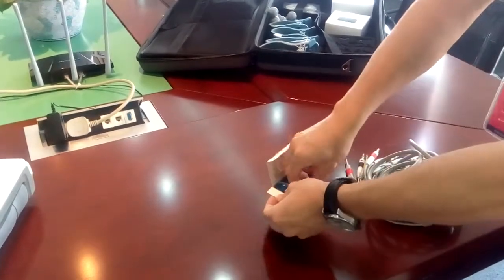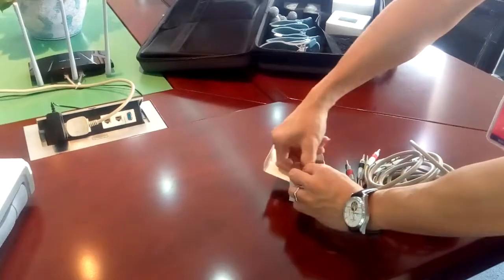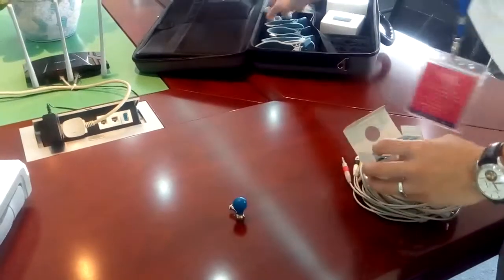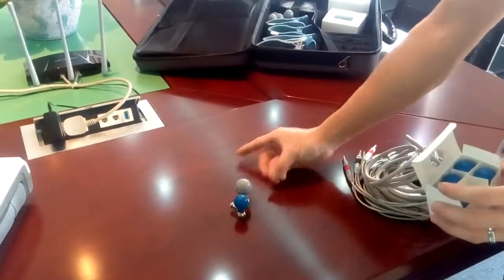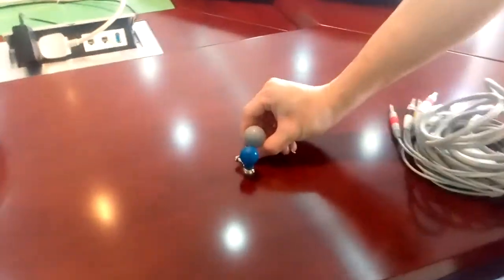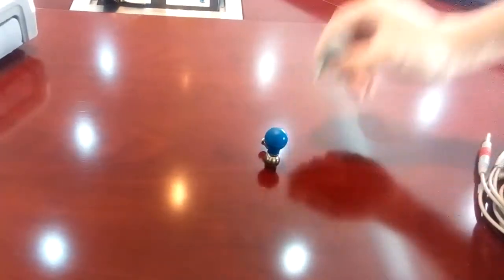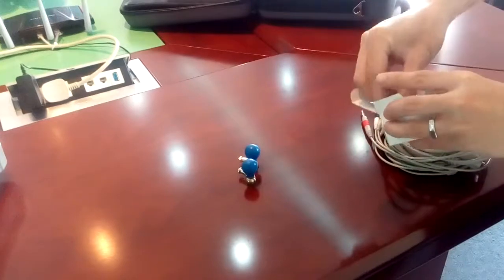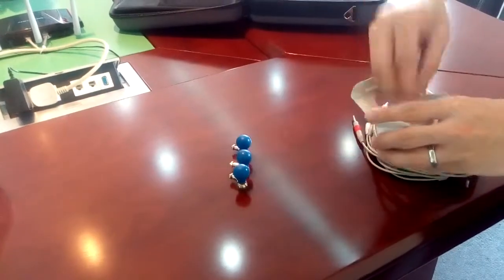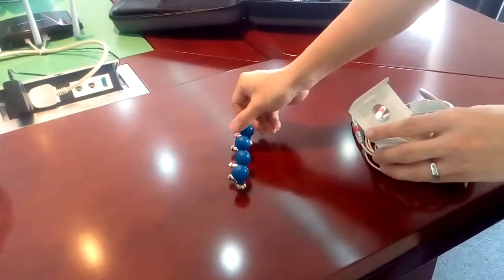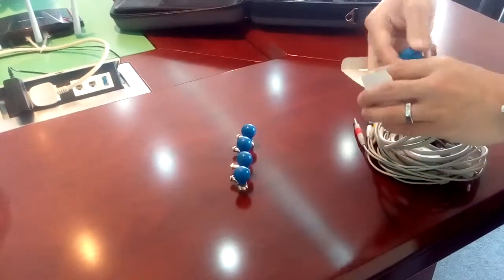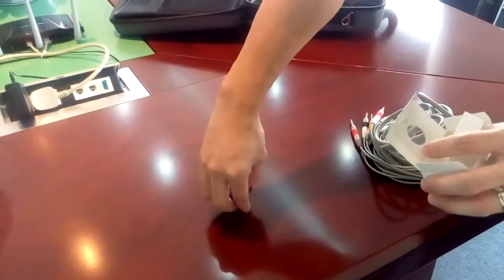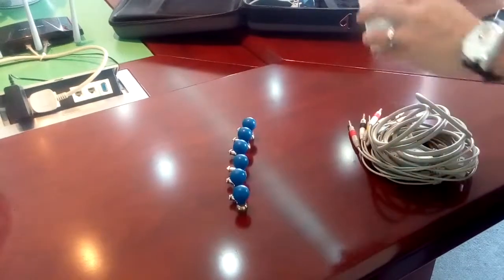You need smaller suction electrodes like this. This is a very tiny one. You can see the size is much smaller. Also the same thing, you have six. It is smaller but still very high quality.